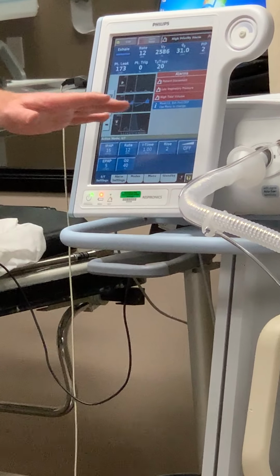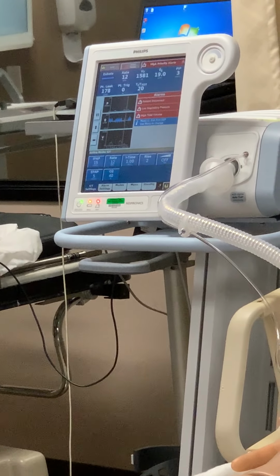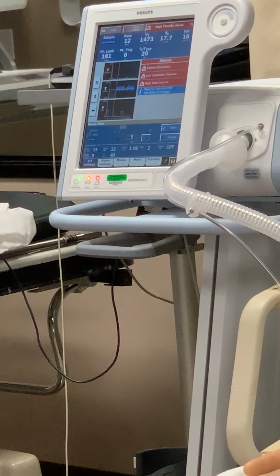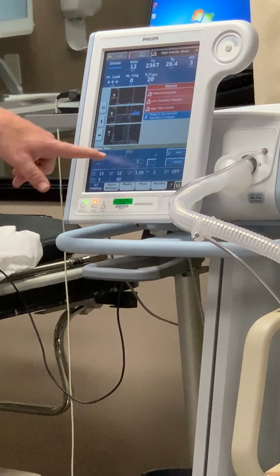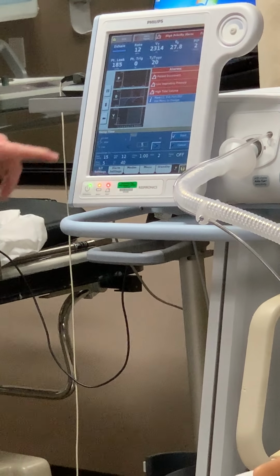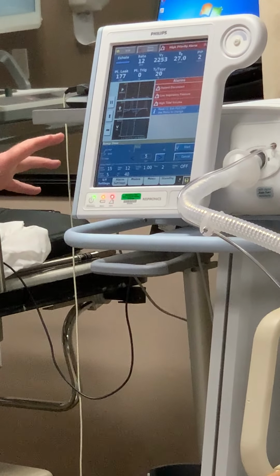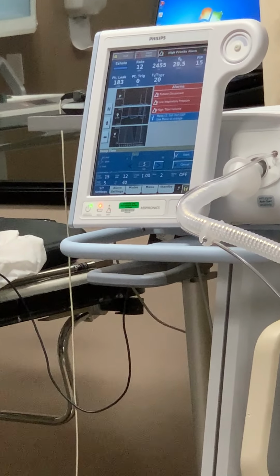Here's your ramp. So this is a little confusing because rise and ramp on the ventilator are the same thing. On the BiPAP, your ramp is a way to slowly introduce these pressures to the patient, right? So I'm at 15 over 5, but I'm gonna get there gradually. And here it's gonna be 5 minutes. So you can look over here, it tells you, we're gonna start at 9 over 4, and in the next 5 minutes, it'll slowly ramp up to the 15 over 5, okay?